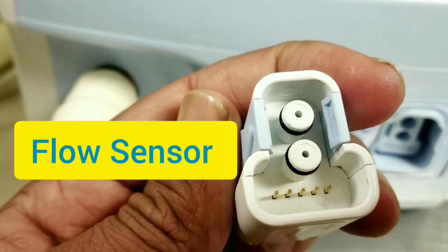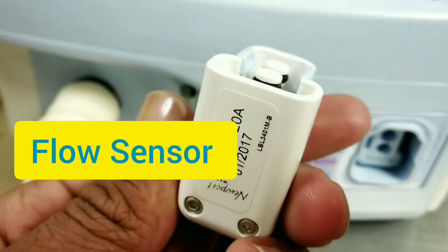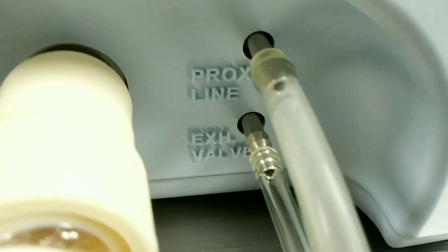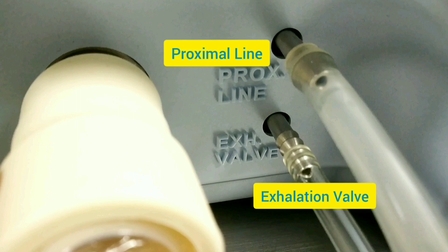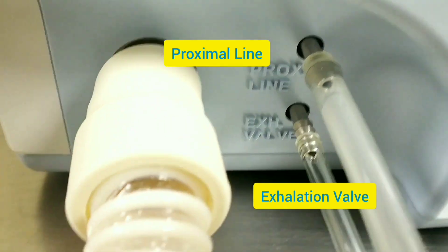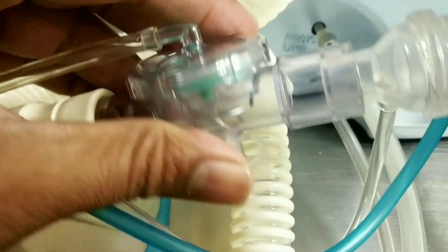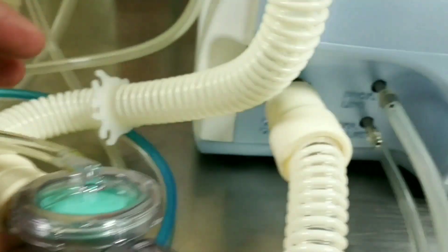This is the flow sensor — you can see the flow sensor attachment point, and we attach it here. The upper connection is the proximal line and the lower end is the exhalation valve; they have different diameters so they cannot be mixed. This is the tube setup — the front section goes to the patient. This is an autoclavable circuit.